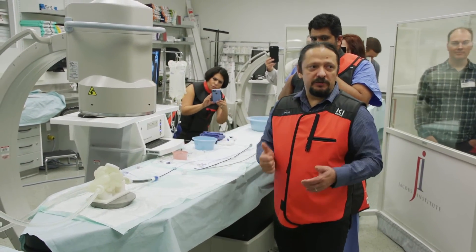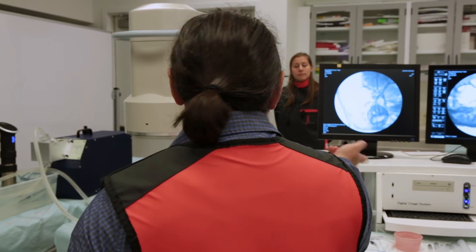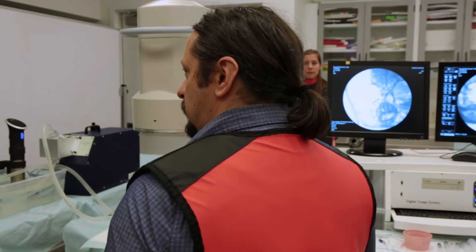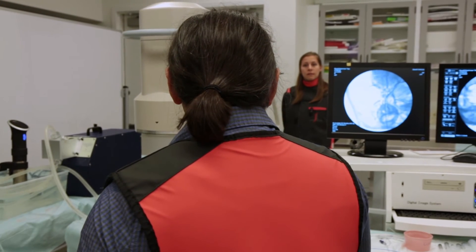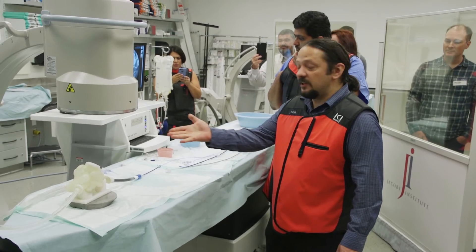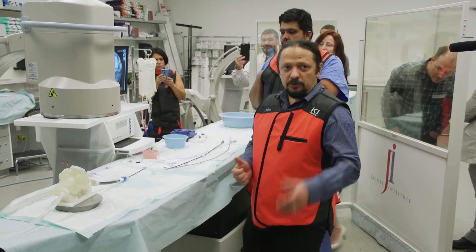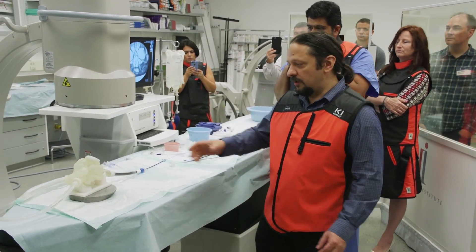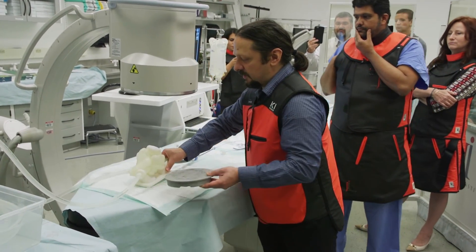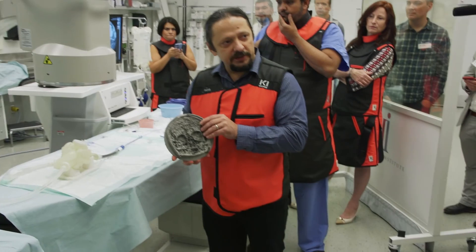We create this topographic map and then 3D print it to create almost an image of the actual setup. Obviously this is only in AP, but if you want to do other things, you can combine them further. That's another thing, and this is more for image quality.